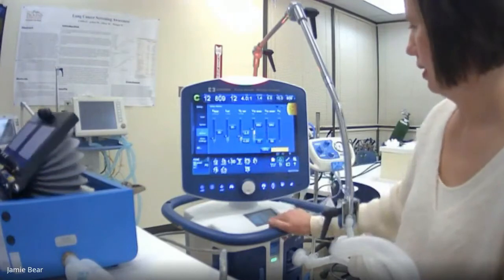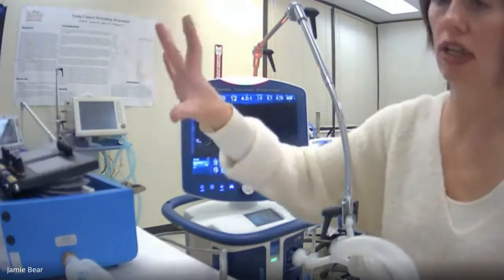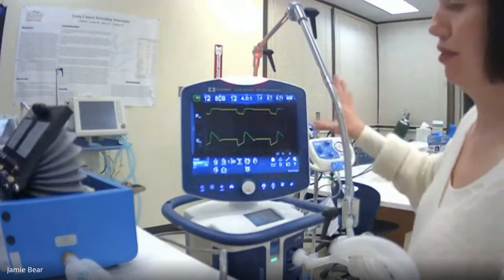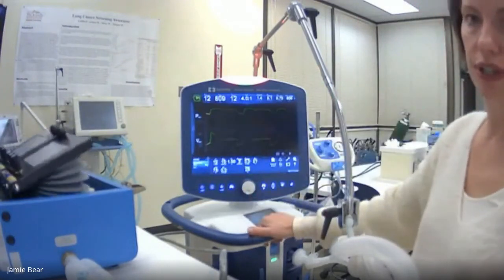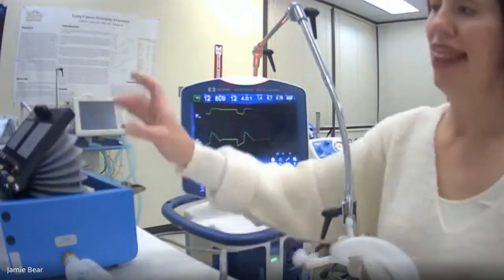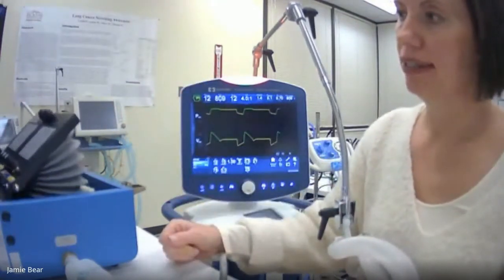Yes, I understand. Okay, so you just have to be careful because it's all about the patient's pulmonary mechanics. So when you're flipping modes like this, you just have to be careful and really make sure that your numbers are staying safe. So we're staying 4 seconds on inhalation, and when we have that drop down, that is what is getting rid of carbon dioxide.